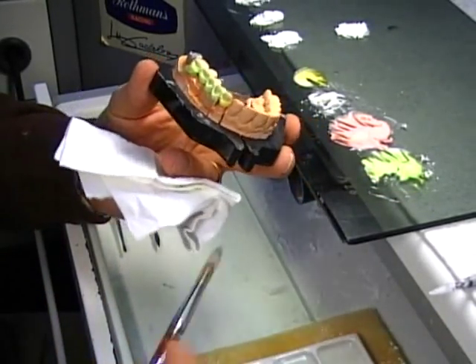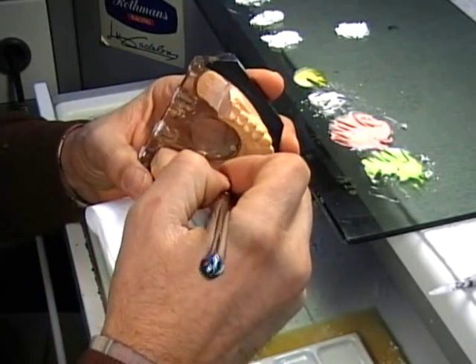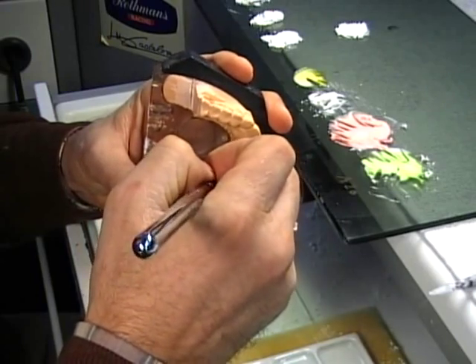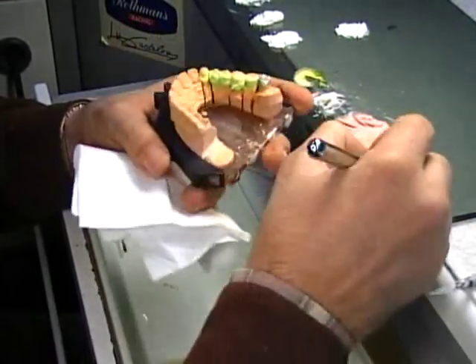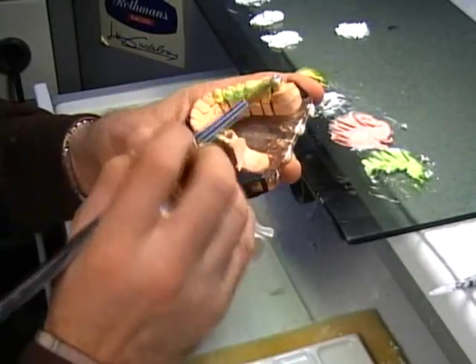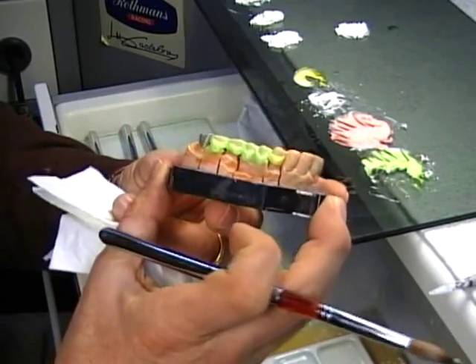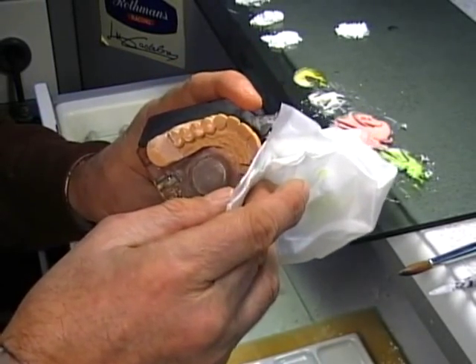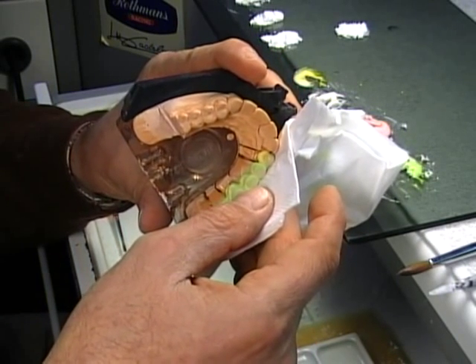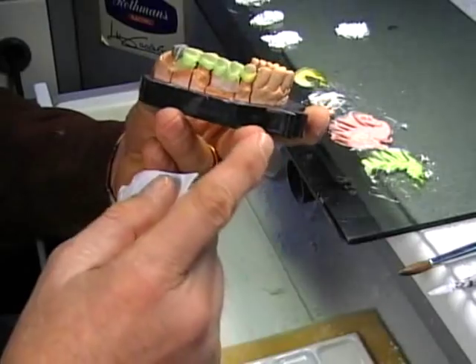Now before drawing, I am going to get involved with the lingual aspect, and I will be adding still here in the lingual side of this case — always opacious body, right down here. I've been working all my way through with brush number eight and that's about it so far. Now I'm going to start drying a little bit this area — that's going to be easy because all I do is put my tissue and look from the back if my porcelain is drying out, and it does.